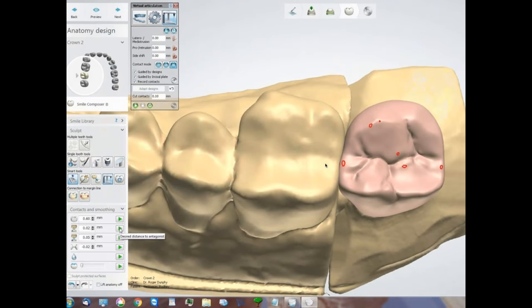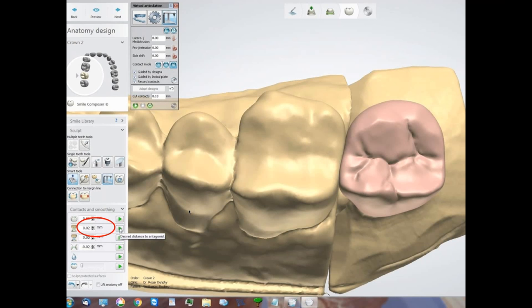Once I have the occlusion worked out, I'll cut my occlusion to where I want it depending on the material. For me, with my milling machine and my environment, 20 microns out of occlusion seems to be perfect for e.max. When we do that and click it, my marks go away. We don't want to do this before we're done because we can't see our centric. That turns out giving me exactly at the bench what I saw on the screen with just bare contact — and you'll be surprised at how good the occlusion is at the bench if the case is on an articulator.